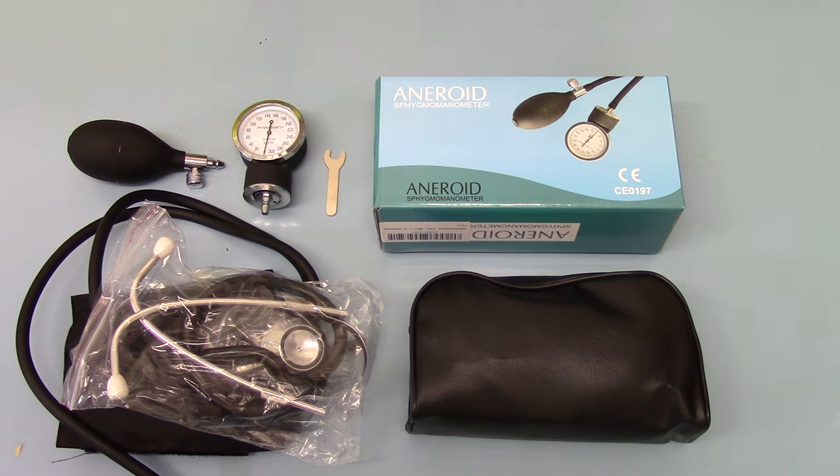These are intended for use taking routine blood pressures in GP settings, clinic settings, hospital outpatients, any research establishment where you're wanting to do blood pressures, health centers, sports centers — those types of settings where they're offering medicals. It can also be used by health resource companies where they're doing pre-employment and employment medicals.